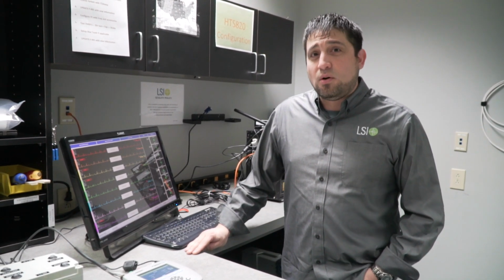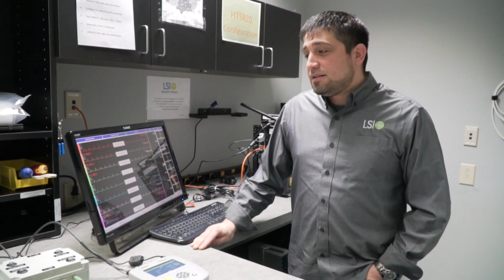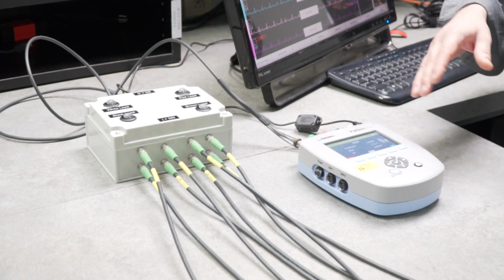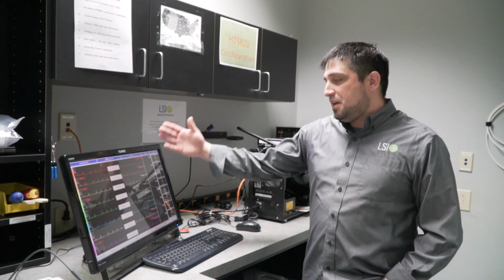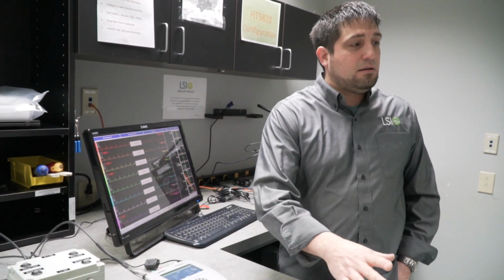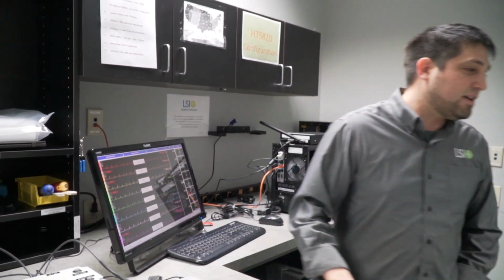I did my project capstone on a heart simulator splitter. The basic concept is to have the patient simulator, which simulates a human heart rhythm, output that to one of our transmitters, and that transmitter will broadcast that data back to our receiver and then it's displayed here on the screen as a patient. The concept is we want to use one splitter to feed multiple transmitters. That way we don't have to have a simulator for each transmitter.